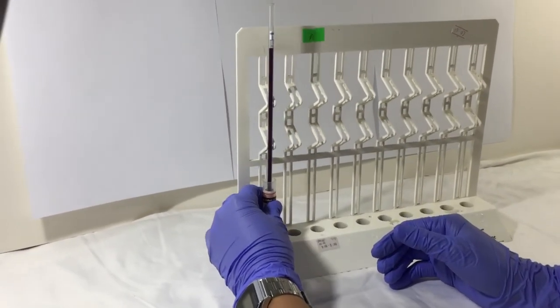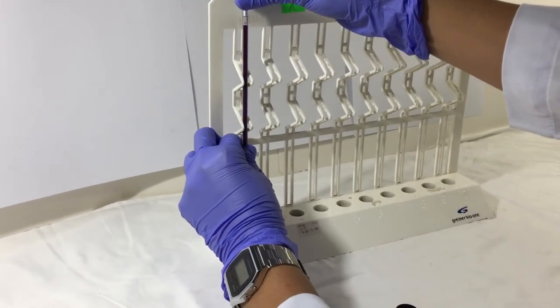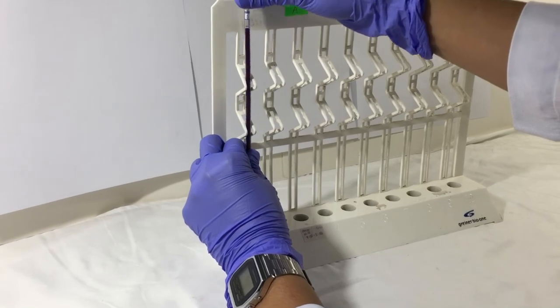Place the tube vertically into a rack and stand for 1 hour. Make sure that you have a timer beside your rack.